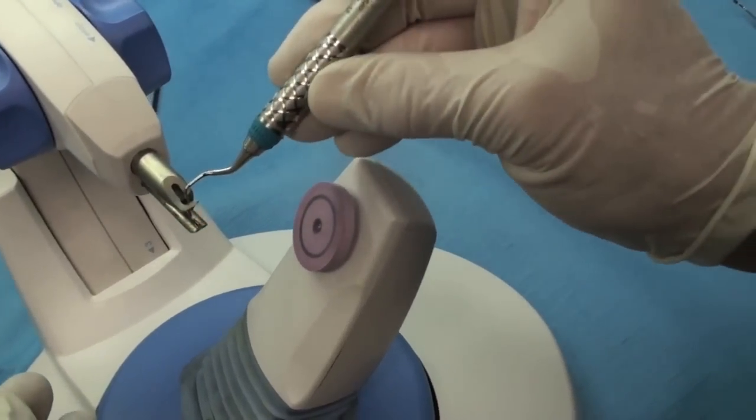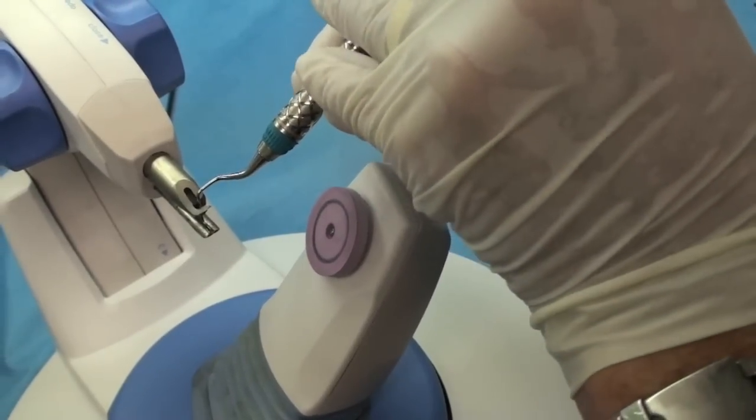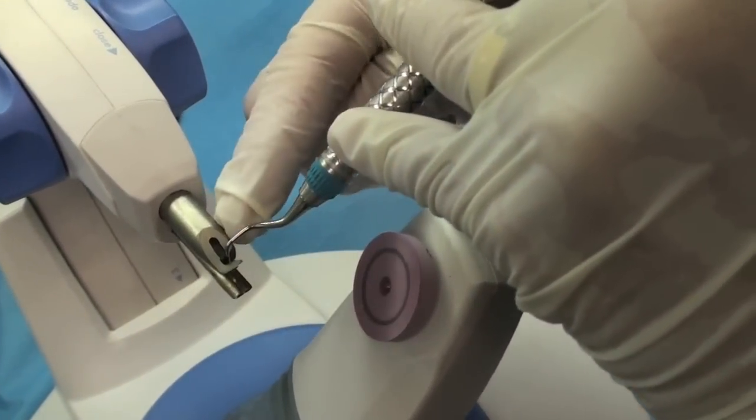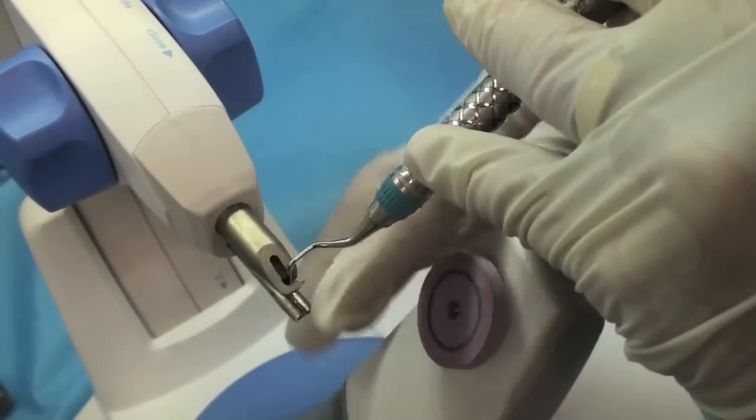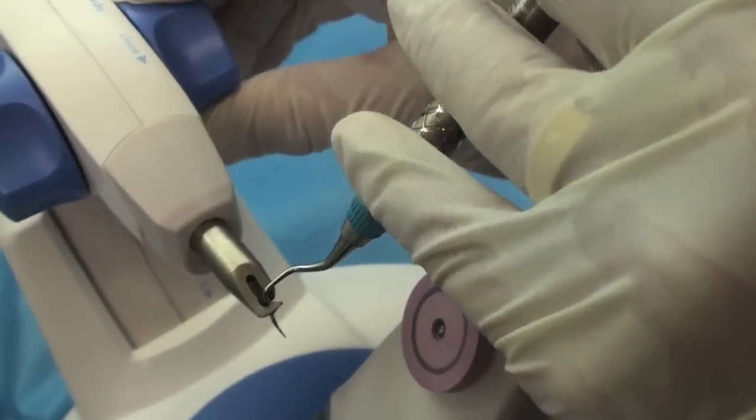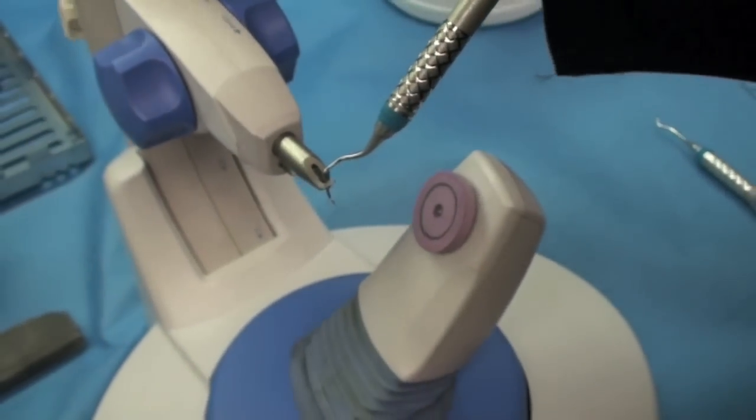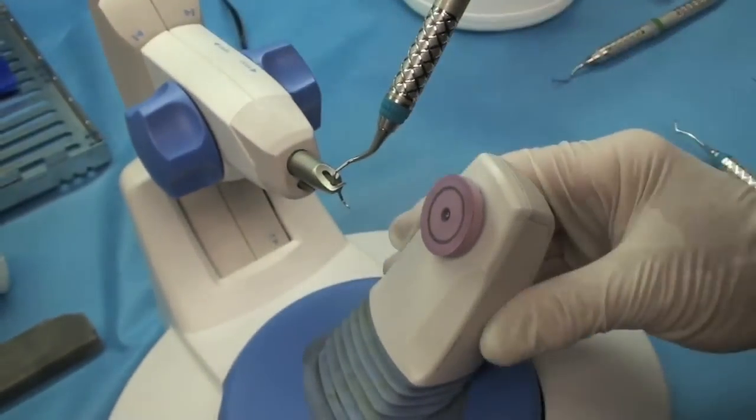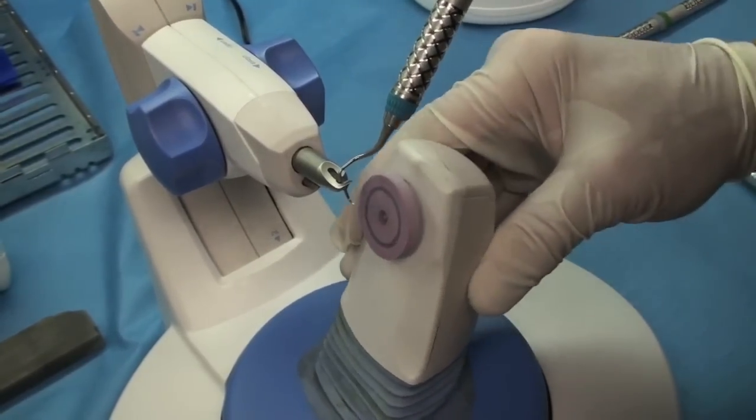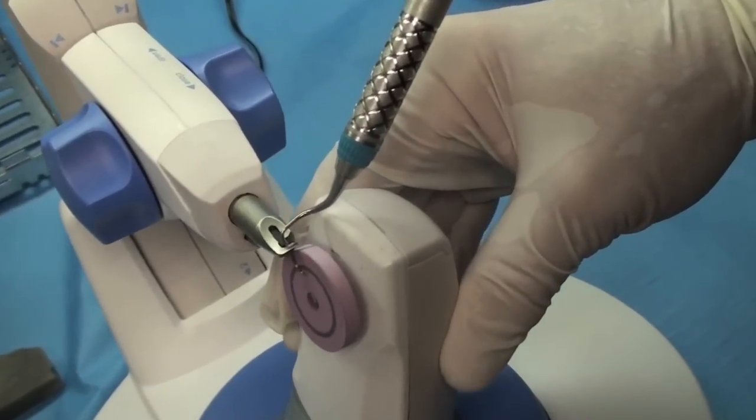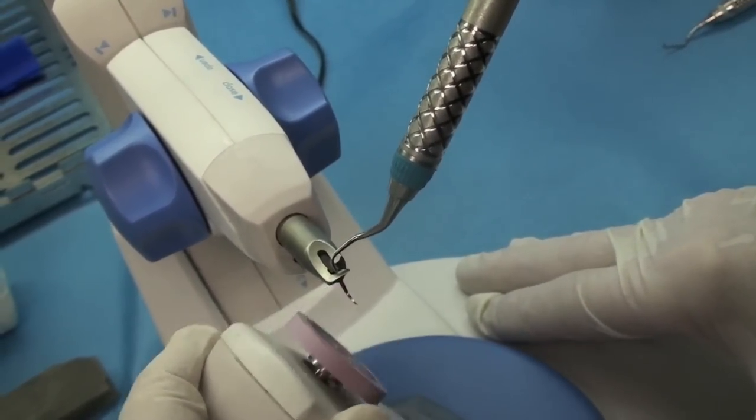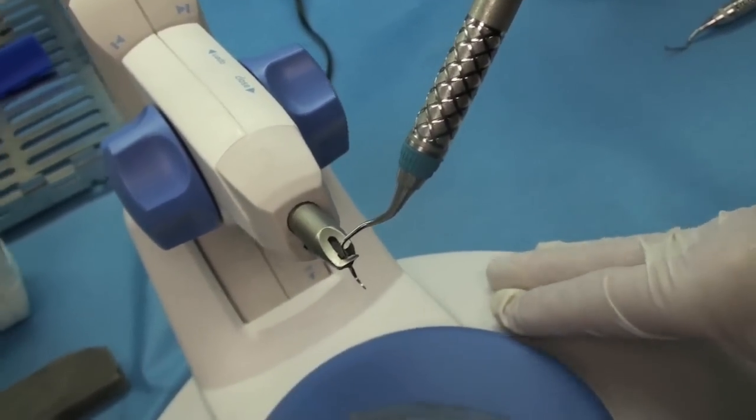This is a Langer. So this is a double edge. So you're going to sharpen both sides. Again, up to three. Put it all the way back to the rubber stopper and the tip sticks in. You don't want that tip sticking out. This way, whoever loads this will pretty much be on the same angle. Whenever you sharpen, the important part is that you're always on the same angle. Otherwise, you have to remove too much of the blade in order to get it sharp.